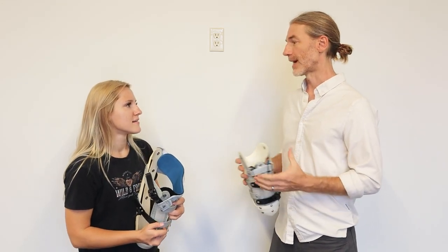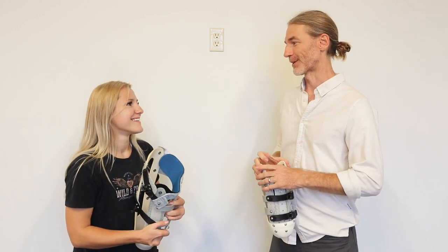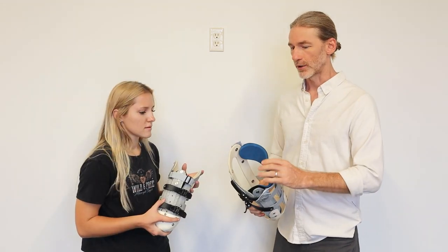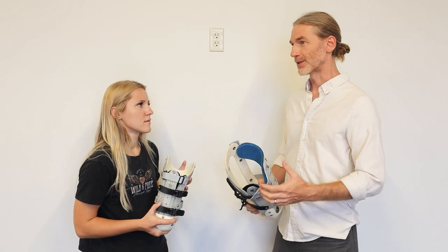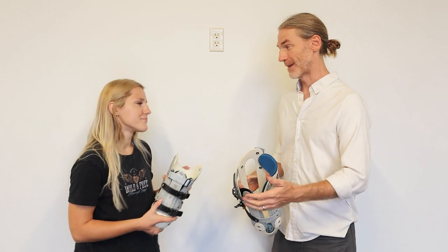So I'm a clinical practitioner by training. A few years ago, I got invited by NASA to help them create some Ironman exoskeleton suits for space and military applications — a really cool, fun season working with NASA. With those, you tend to have rigid brims. The brim is the most difficult part of the prosthetic to make and design for a patient and to keep comfortable.